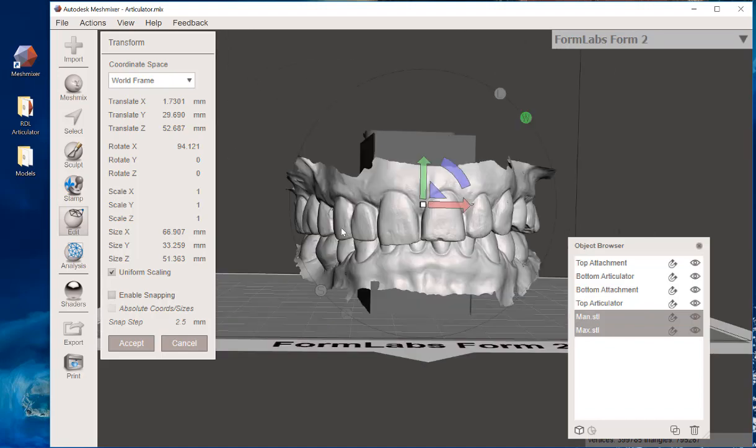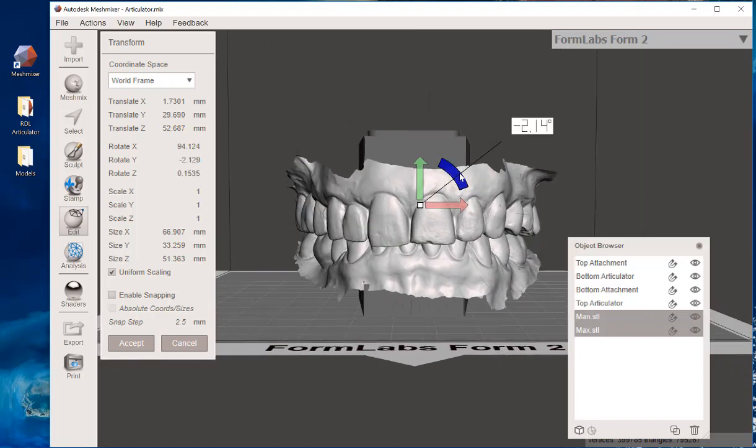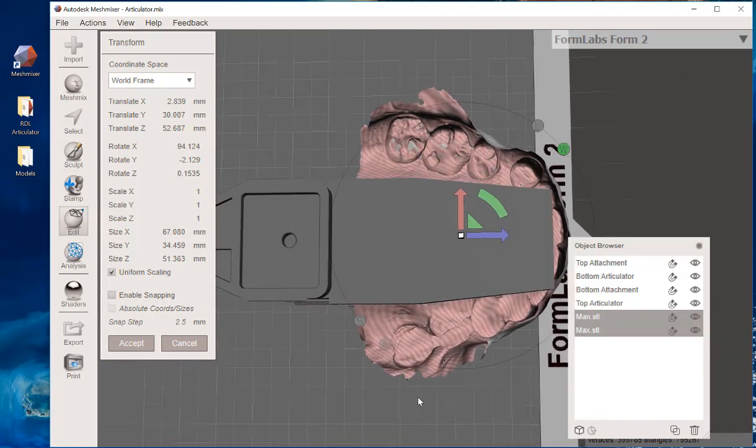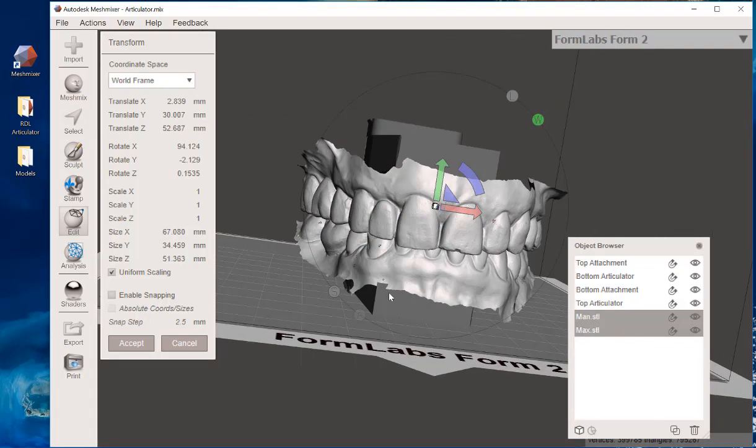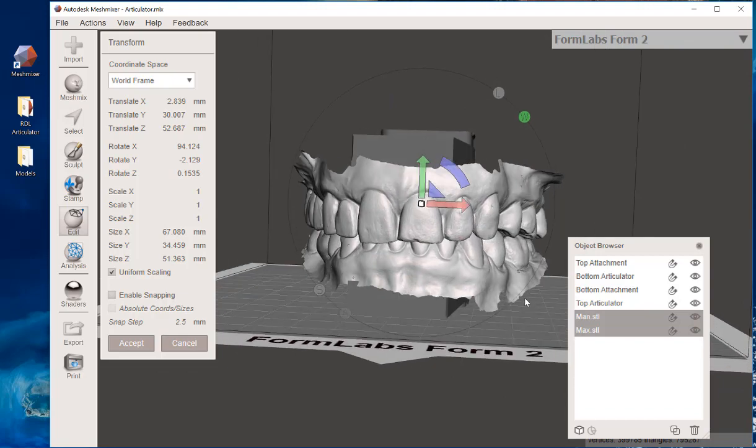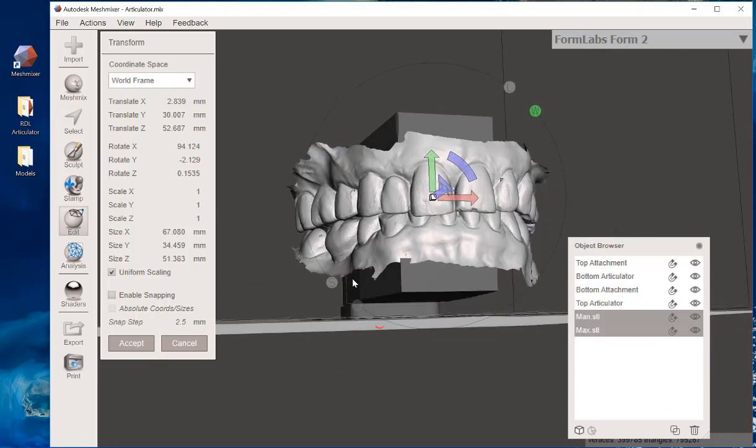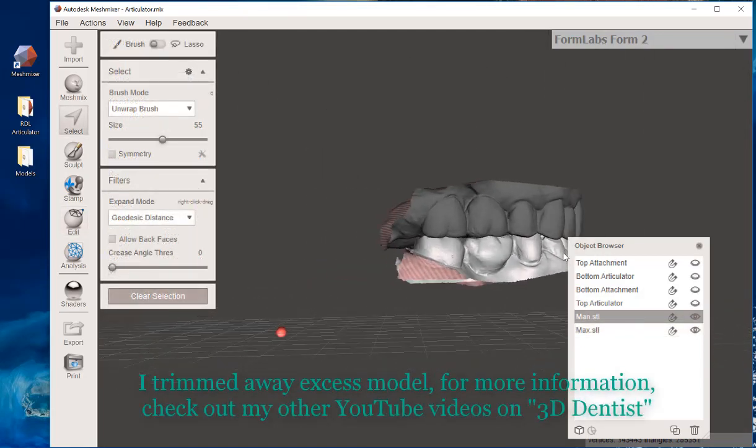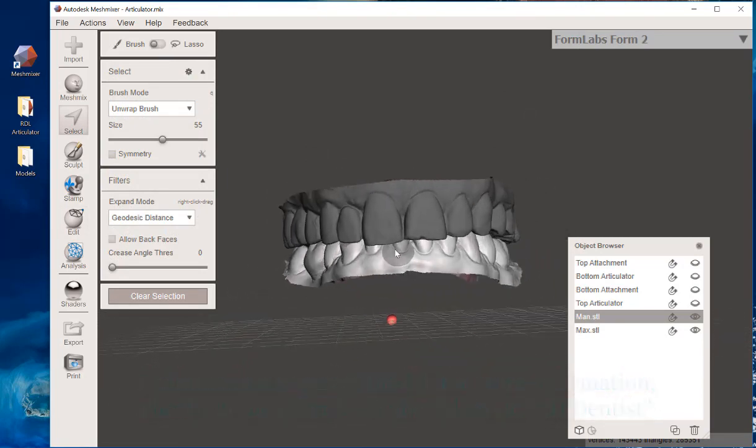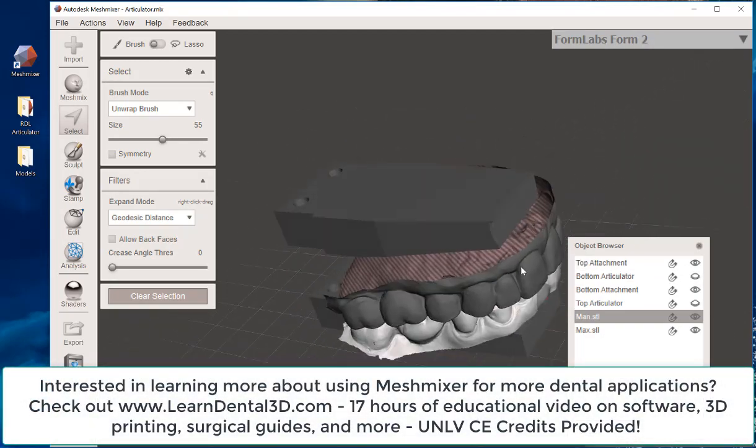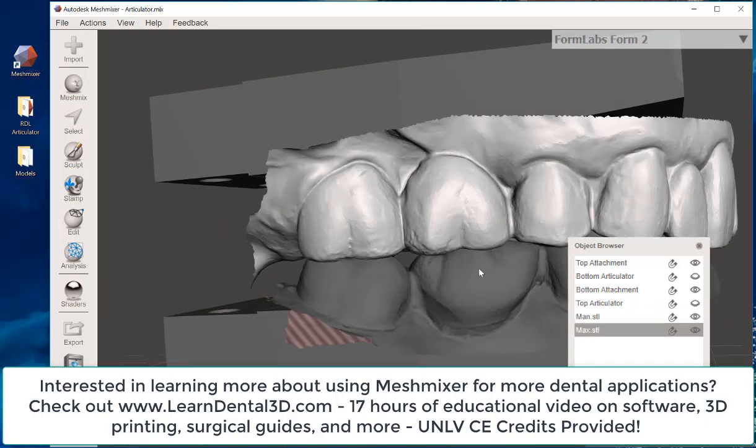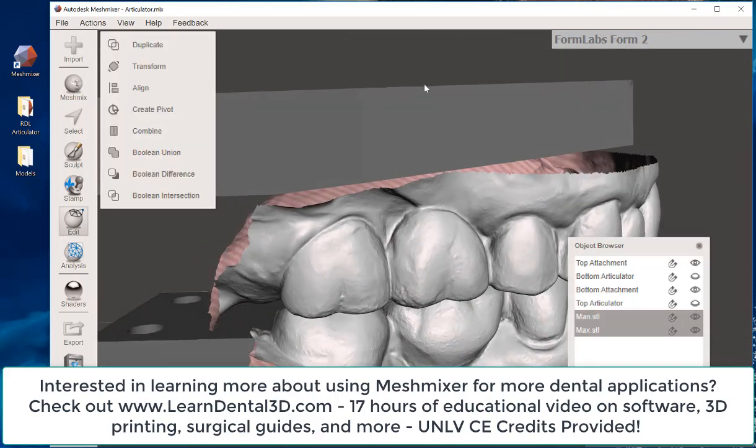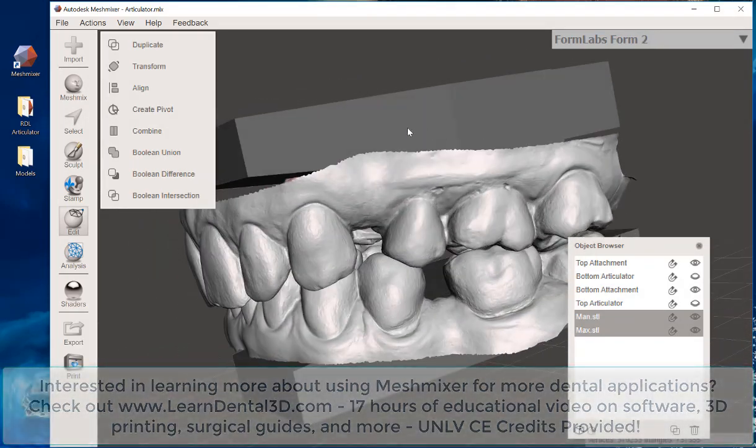What you generally want to do is take your patient's scan and kind of put it in the middle of these little articulator attachment parts. The general idea is that this is the articulator here. It's going to hinge open and closed. These little attachments merely serve as a method for you to attach these to the actual patient's dental model. Now, from a frontal point of view, I also want to line up the occlusal plane and put the patient's midline about in the middle of the articulator. You can look at it from multiple dimensions. It's not critical that it's exactly perfect, but what really matters is that we have everything lined up so that it's clean within the articulator attachments. So, once I've cut away my model, everything here is set. I'm going to turn back on my little attachment portions, making sure that the edges of my upper and lower models are not past this flat part of that attachment.